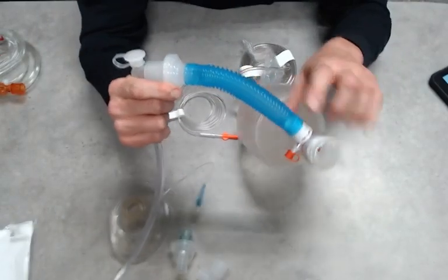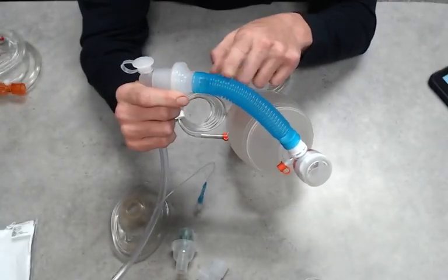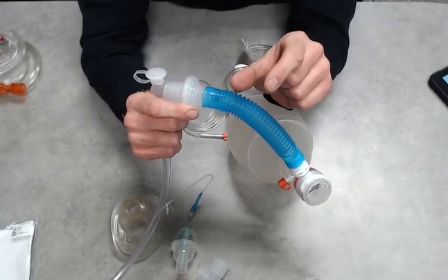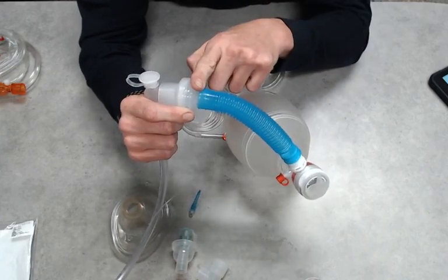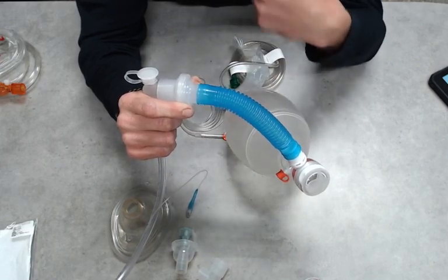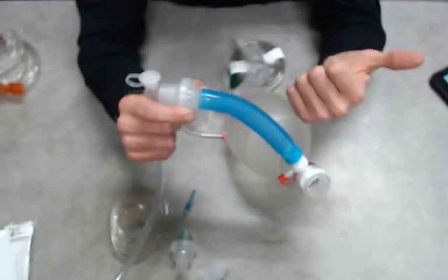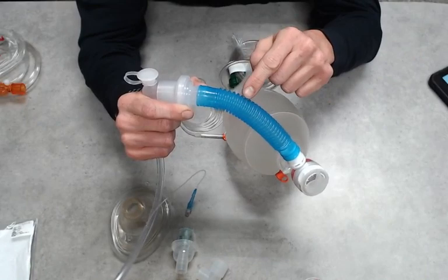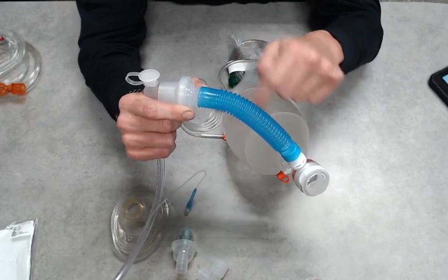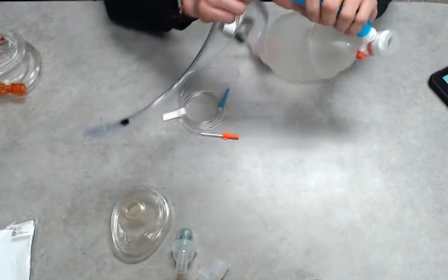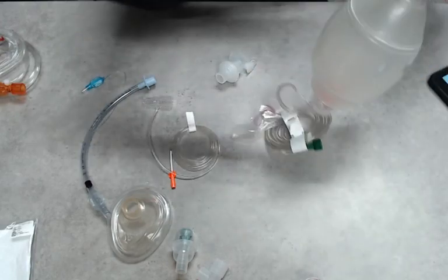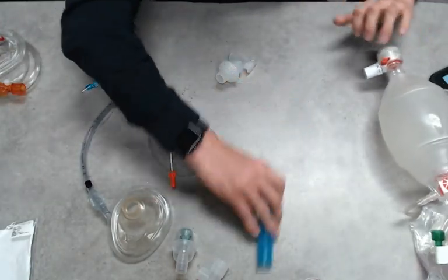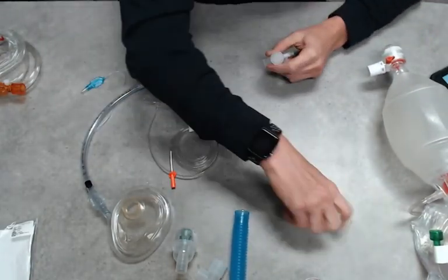Now keep in mind, some agencies may have kits that have smaller adapters. Usually they're hard plastic and have different diameters to them, so that could really shorten this up quite a bit if you have that option. Our department doesn't. Our transporting rescues do typically have those, so make sure to use it if you have it. Might make things a little nicer, a little tighter, cleaned up. So now we're going to take this all apart again. Each one of these, I'm going to start from scratch so you can see exactly how they're set up. Try to make this as simple as possible.